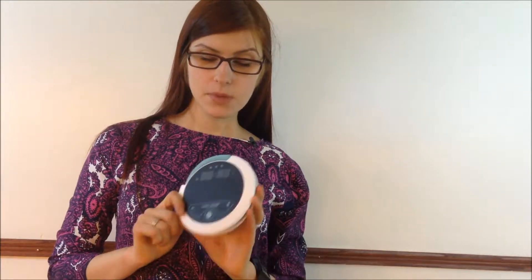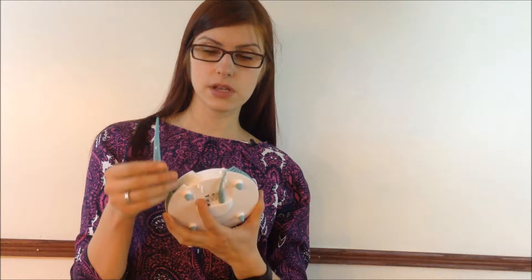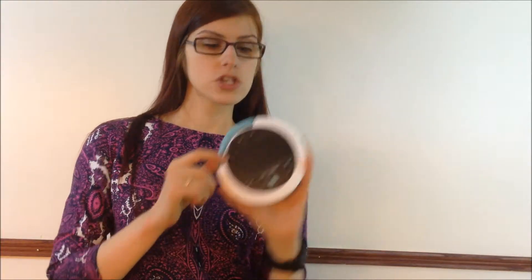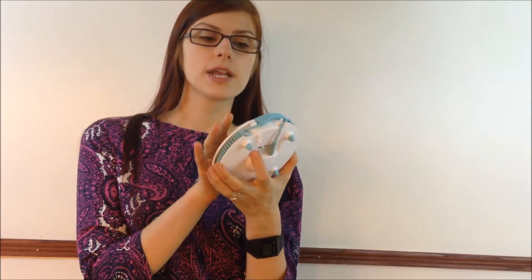What the device actually does is you set up an alarm, and in the morning it wakes you up. You put it under your tongue, it measures your temperature, and it shows one of the little colors on top. The colors are green, yellow, or red.